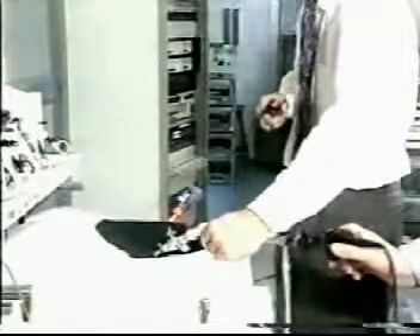Pick it up and pass it to the right hand grasper and replace the dental roll into the galley pot. Now, repeat this exercise starting with the left grasper. Pick it up, pass it to the other instrument. Put it down, pick it up, pass it back and replace it in the galley pot. This seemingly pointless exercise will improve your manipulative skills and hand and eye coordination.